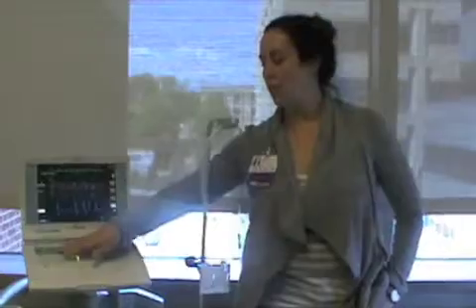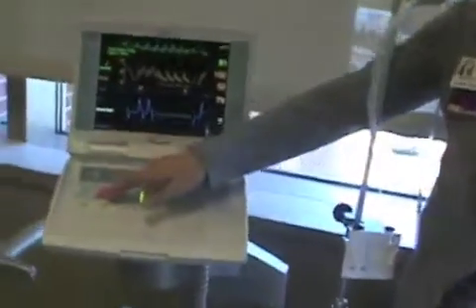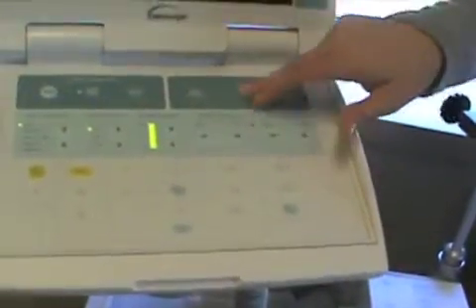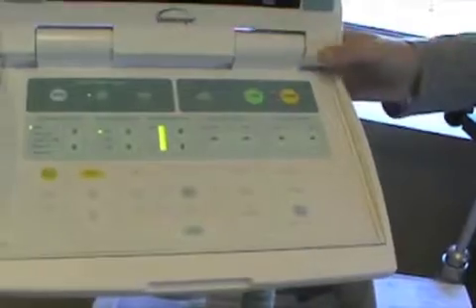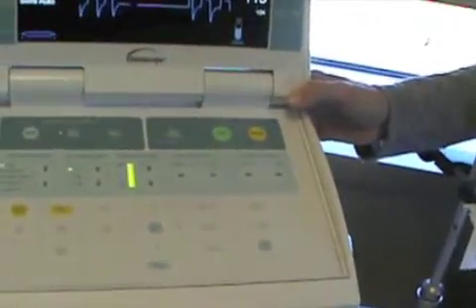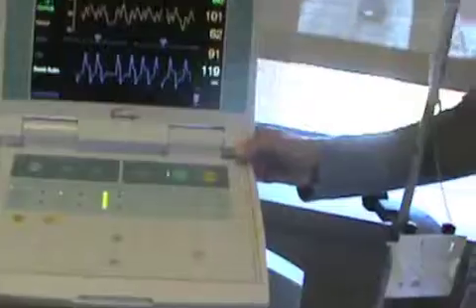Sometimes, if you want to try to get that alarm resolved, you can take your patient out of auto and put them in semi-auto. If they were on a pressure trigger, you can switch them up to an EKG trigger in semi-auto mode. When you restart it in that setting, it can get rid of that pressure alarm for you.